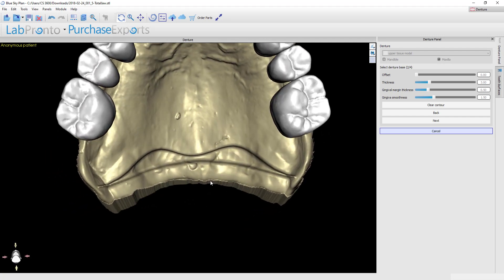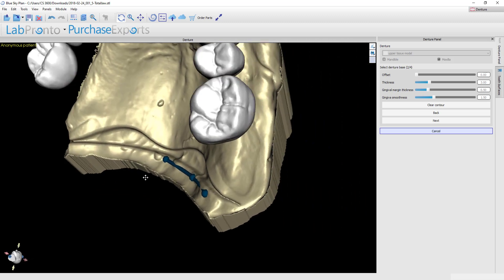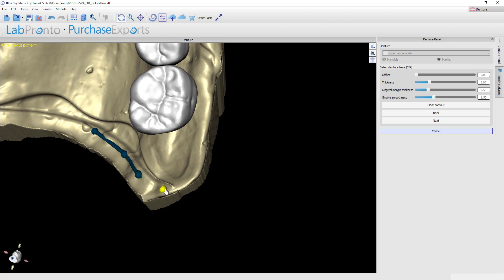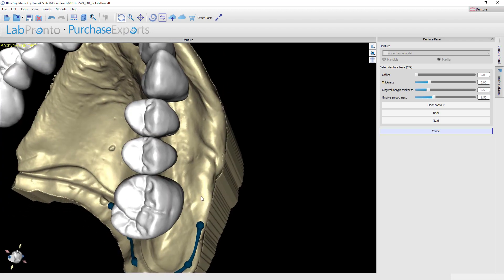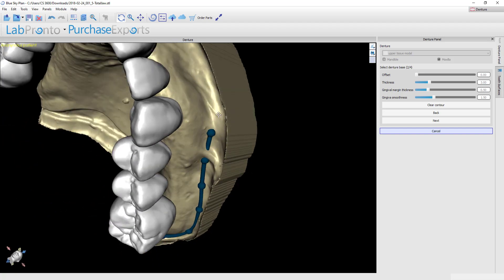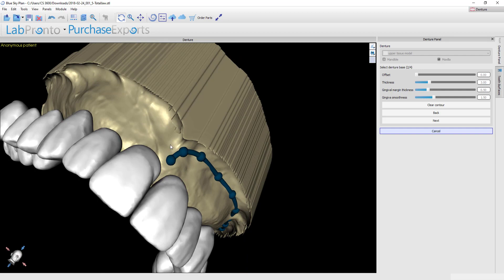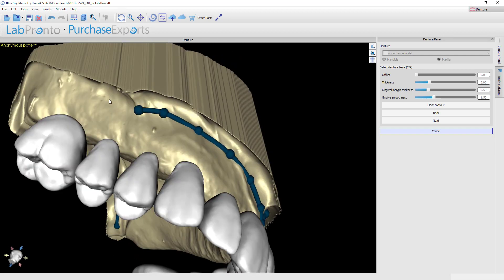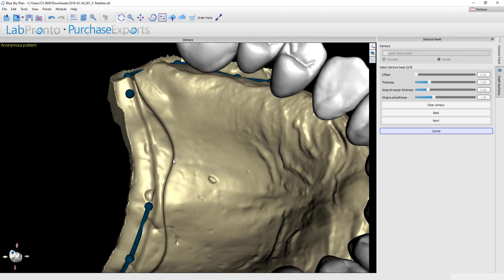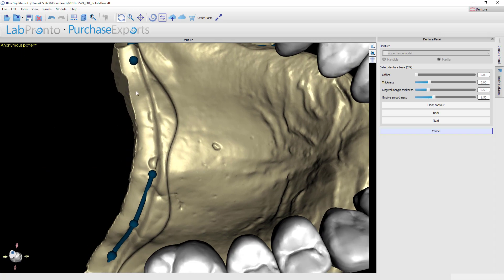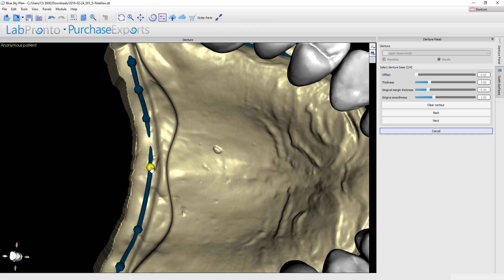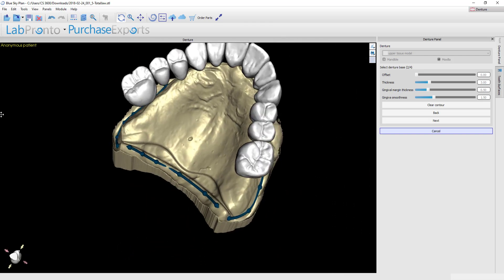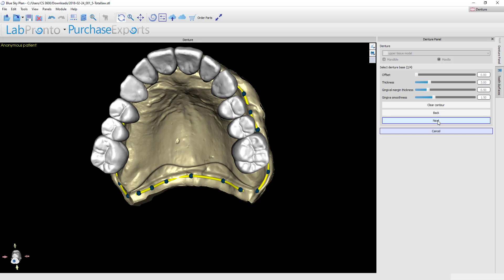So you need to go ahead and draw the perimeter of your denture. You can do this by holding the shift key on your keyboard and then dropping a left click, and then continuing around everywhere that you want to create the border for the denture. I'm going right at the depth of the vestibule. You'll just continue to shift and left click to drop points, and then very important when you get back to the center, you need to take the last dot and draw it into the first one. As you see that closes the overall contour, and now we're ready to proceed with creating the denture base.